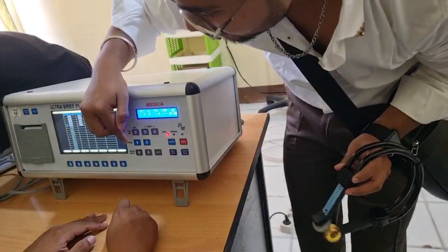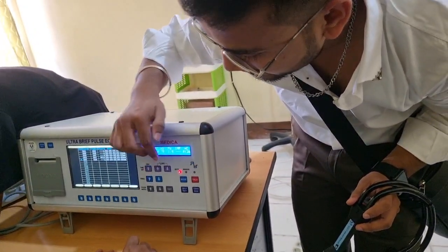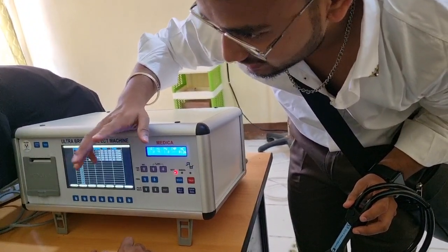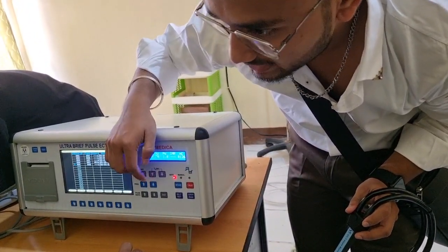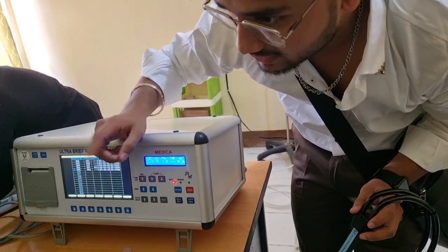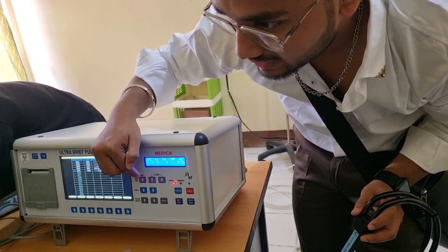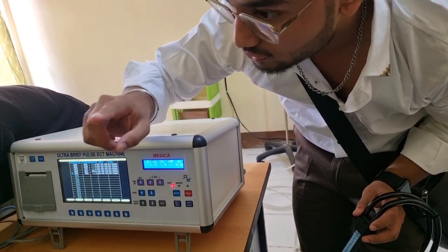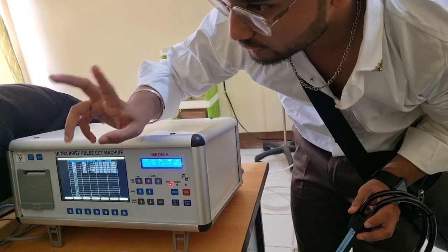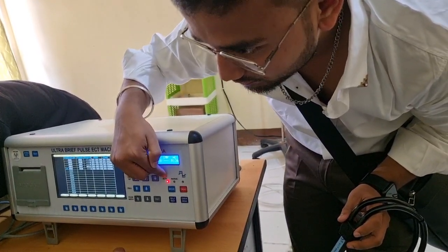Basically, when we select the current, we will select the time, like 1 second, 2 second, 3 second, or 4 second. The current will automatically multiply with this. If we selected 1 second at that much joule current, then when we increase the time, the current will also increase according to 2 seconds. So what happens when we use auto mode?